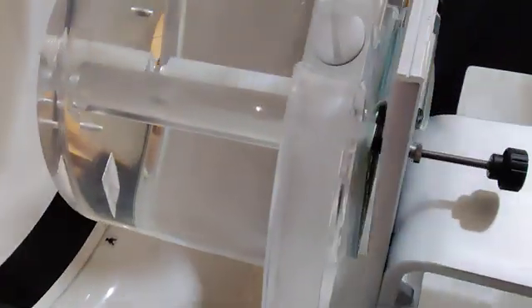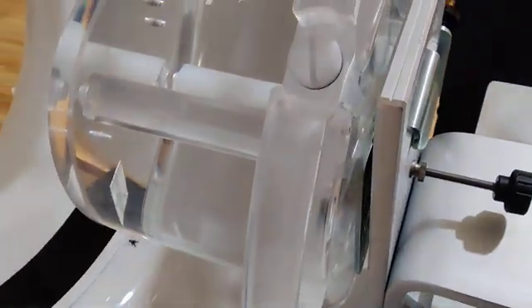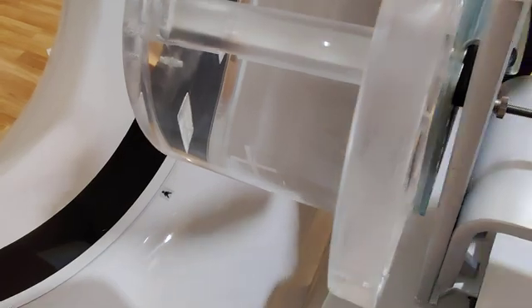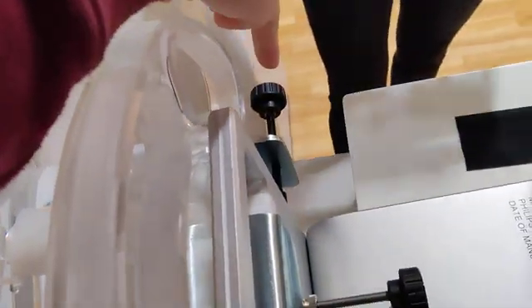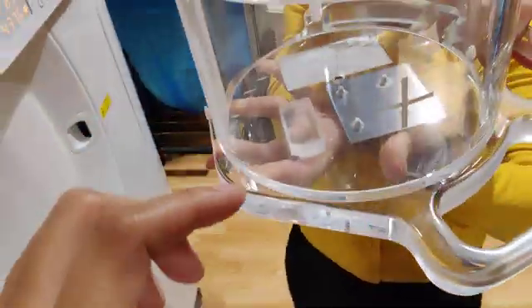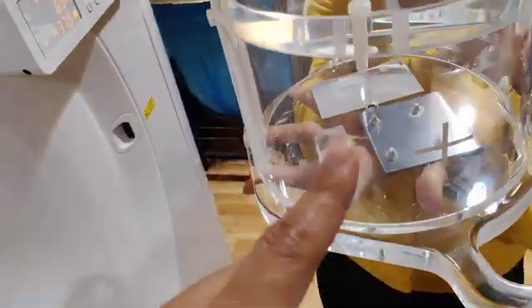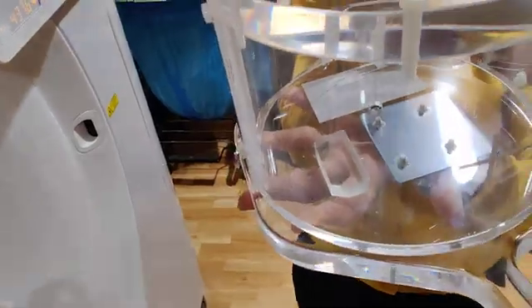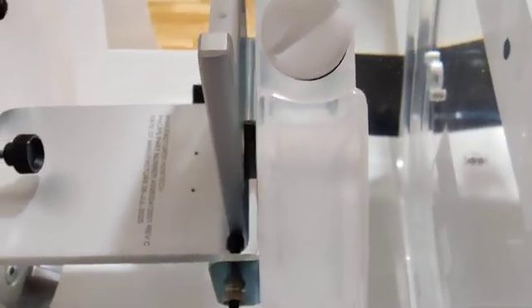Just so you know, when you see this one sitting over there, don't grab this one thinking it's this one. How do we know the difference? If you see this one, see how there's like wires in there inside?